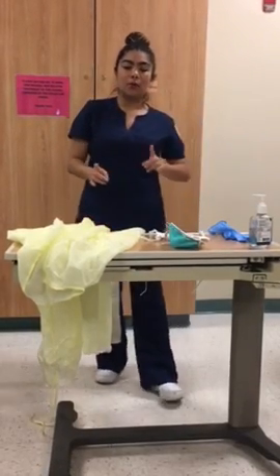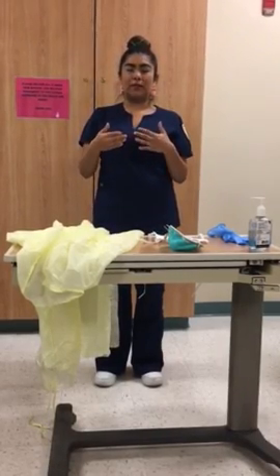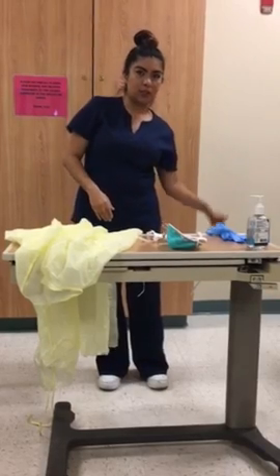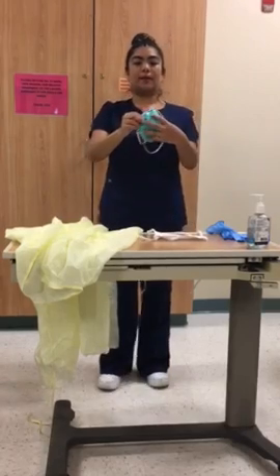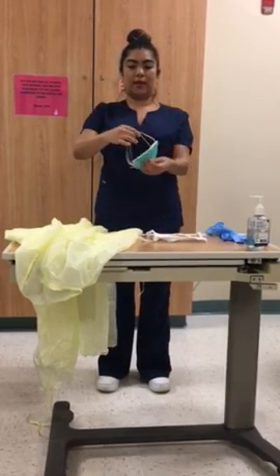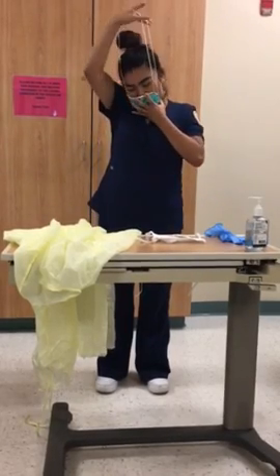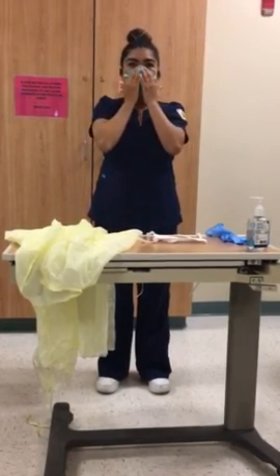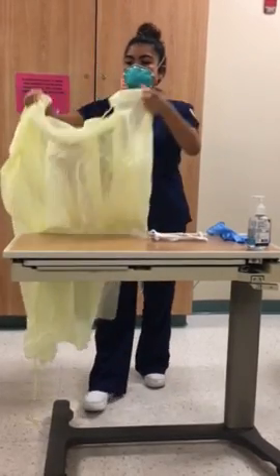Now, in case you are going into a room with a patient where you need to wear some shoe covers or a cap, prior to seeing the patient, you would place the shoe covers on first, then the cap, and then your mask, which in this case is my N95 mask, because again the patient has TB. I'm going to put this on. Okay, make sure it's a snug fit all around.